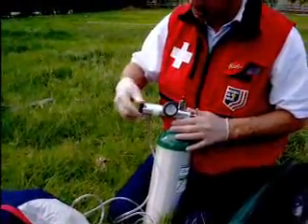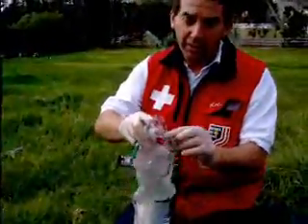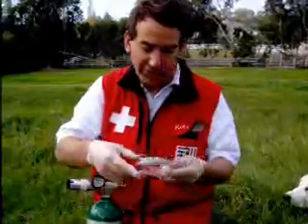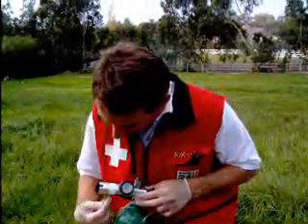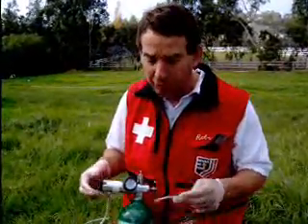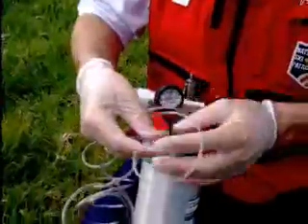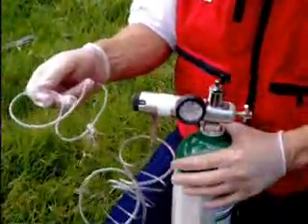There is another device for administering oxygen — that's a nasal cannula. A nasal cannula will increase the oxygen delivered to something on the order of 25 to 30 percent, which is not much above what you normally get. The primary use cases are for a patient who is panicking and you want to calm them down, or for someone having mild altitude sickness where you want to give a little supplemental oxygen. But in any sort of trauma or treatment for shock, you don't want to use a nasal cannula.